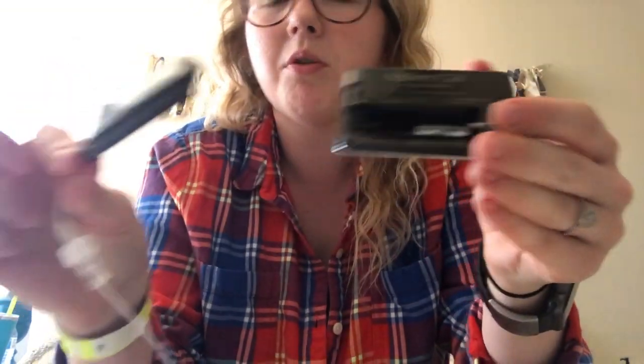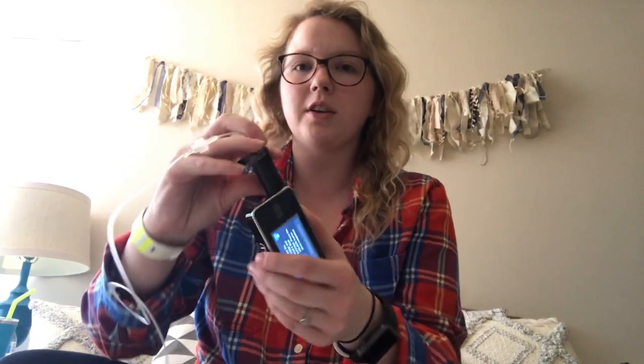I'm going to push really hard and it's going to pop out, so I'll pull it out and tell my pump 'cartridges' and it's going to prepare it for me.